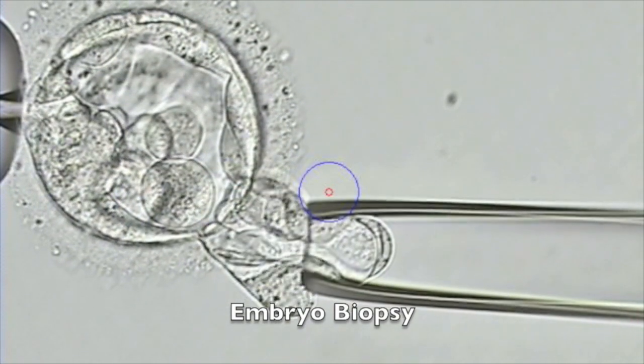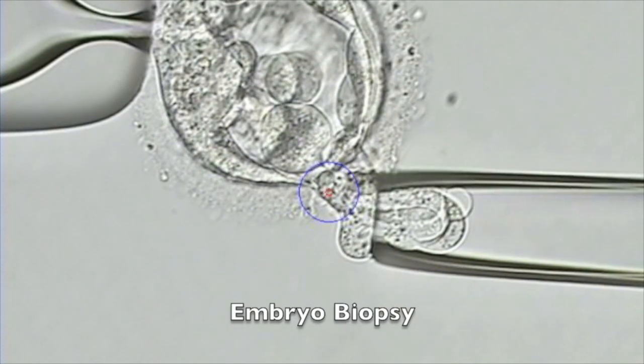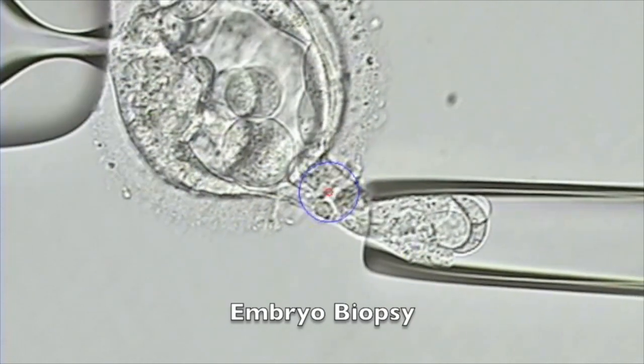Those cells will then be shipped to a genetic laboratory, and the embryos will also be frozen shortly after the biopsy. Once the genetics lab receives the sample, they'll go through an analysis process called next-generation sequencing. This technology is the latest technology to analyze the chromosomes, and it will allow us to look at over a million different data points within the chromosomes. After a few days, we'll get the results back from the genetic testing and learn which embryos are suitable for transfer.